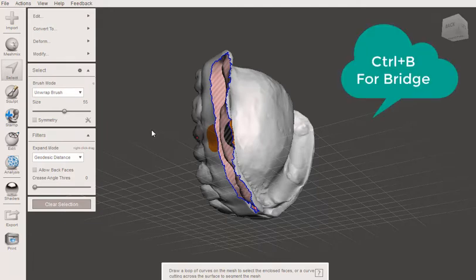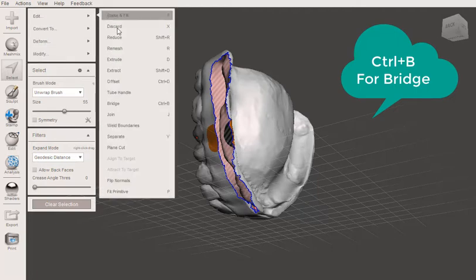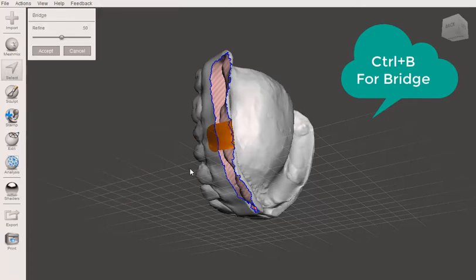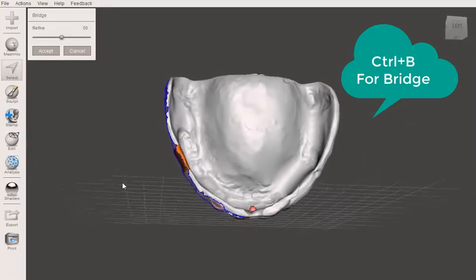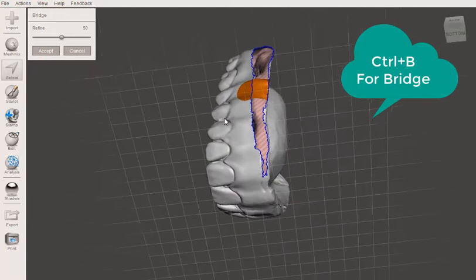It's just going to make things a little bit cleaner and nicer. Then when I hold shift and hit B again, and that brings up a bridge tool. And if it doesn't, or sorry, control B. And so that joins these two, right?